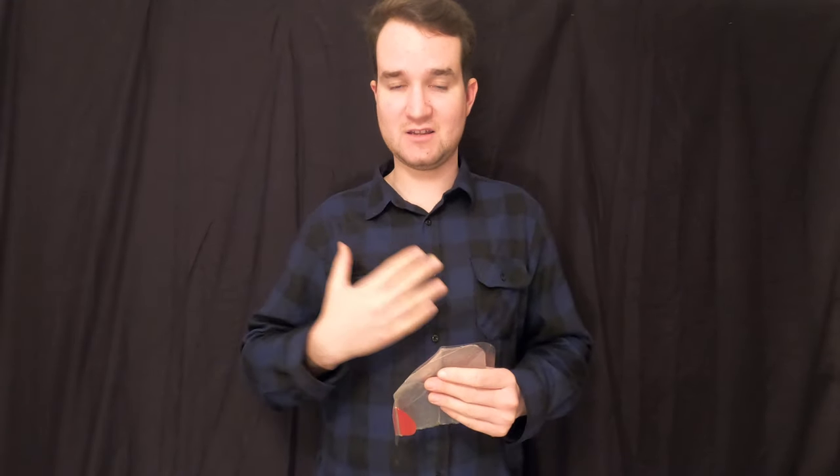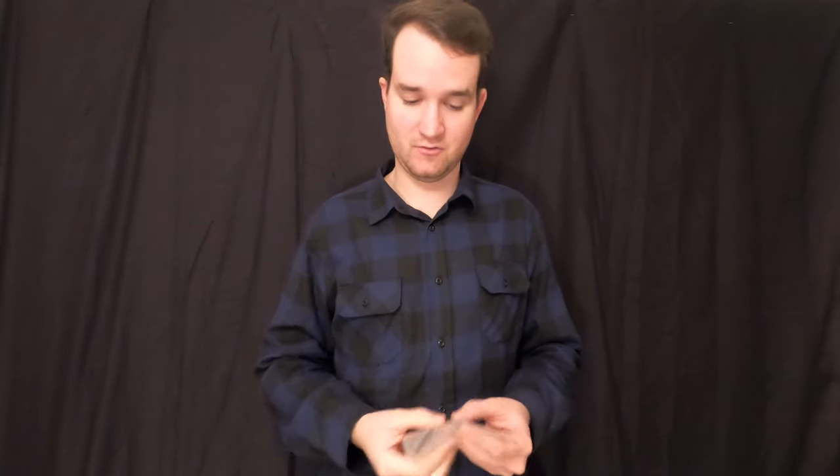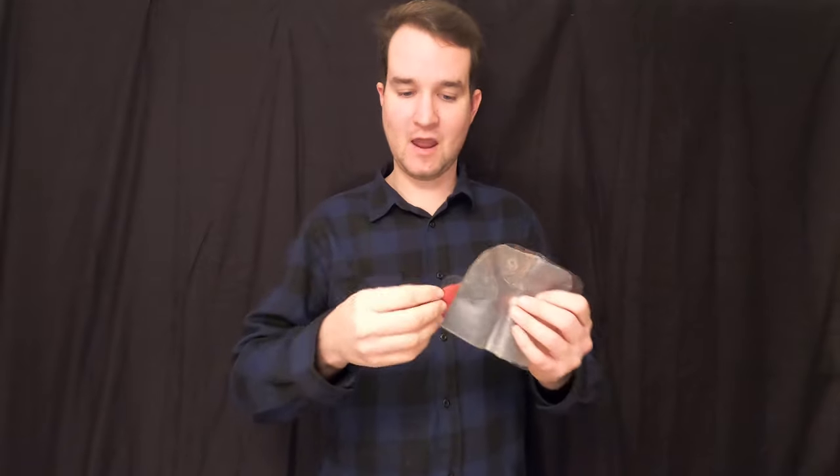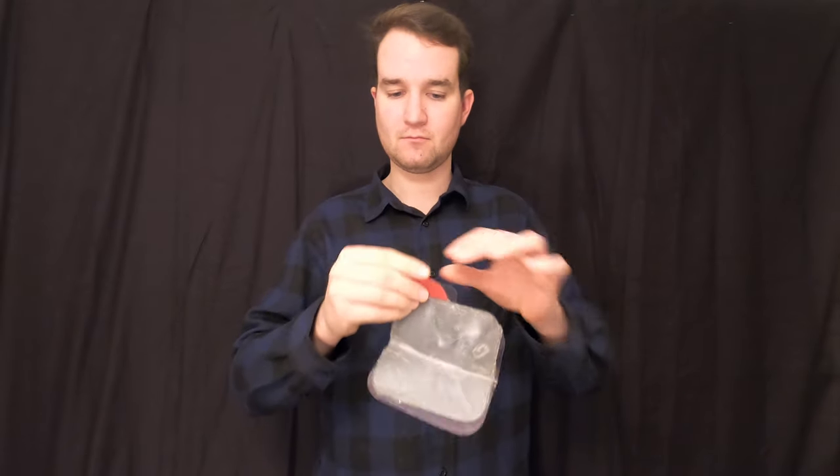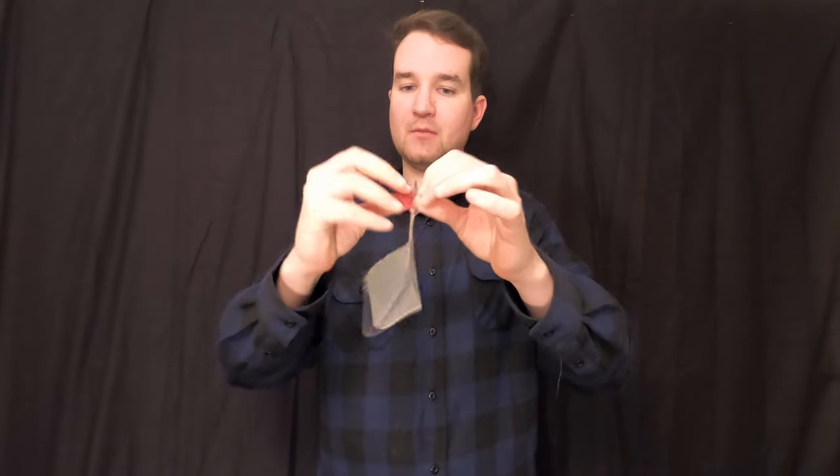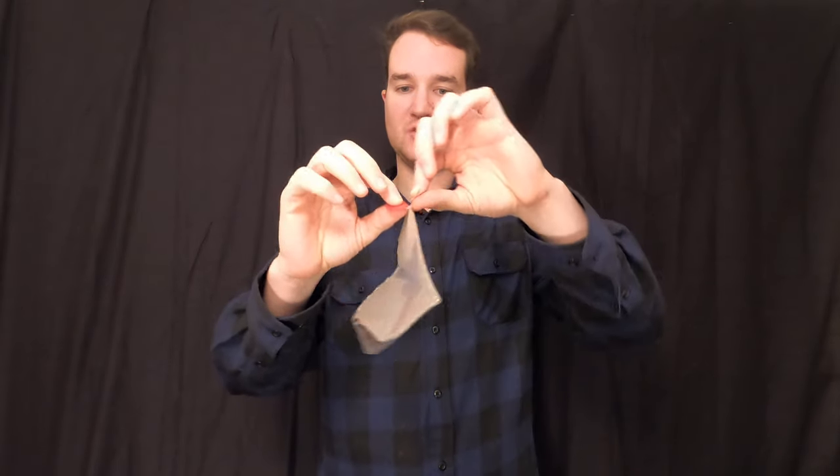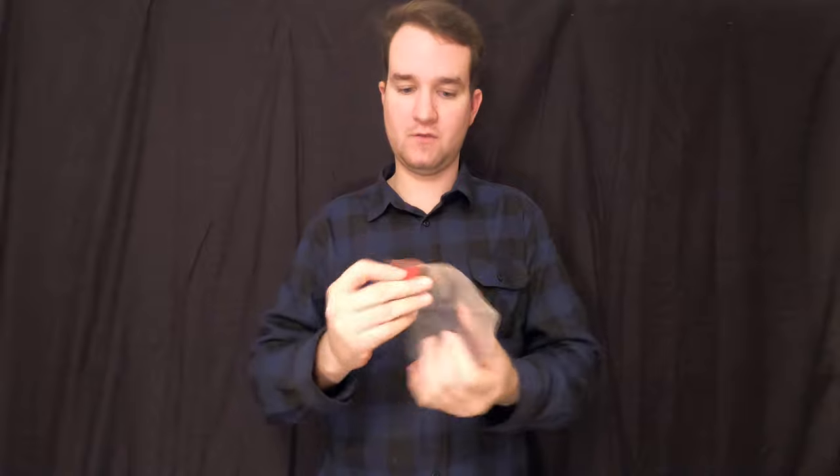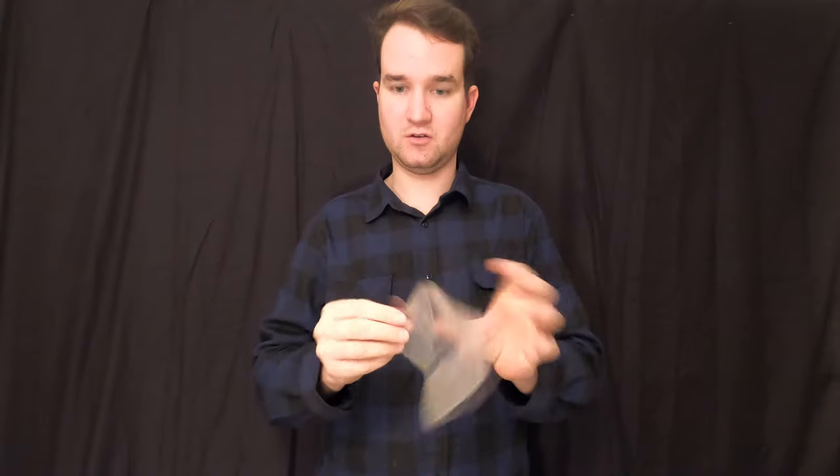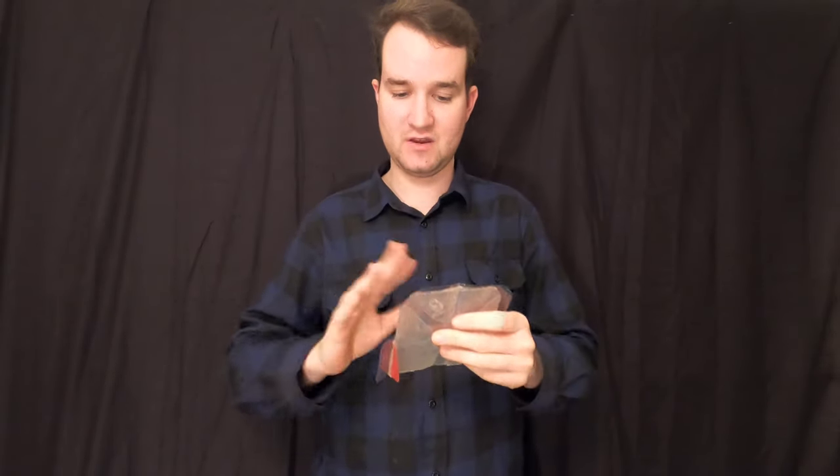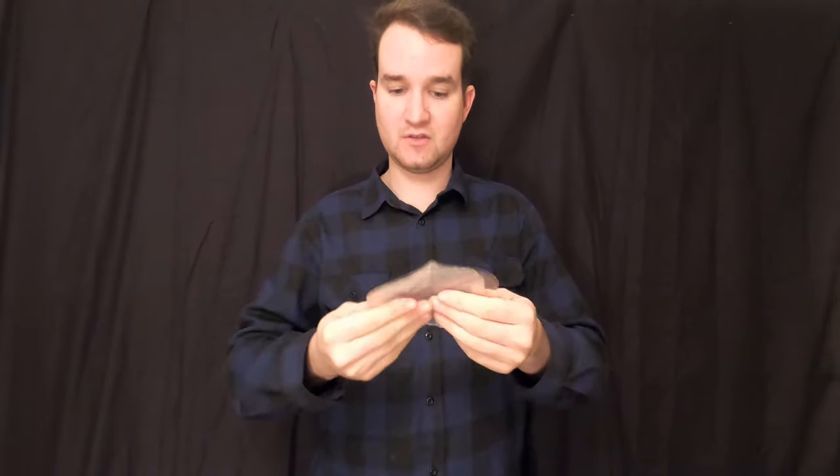A big thing with that is you're wanting to really wipe away, clean the area so that when you're putting the chest seal on, that adhesive can actually stick to your body. It's not just put on the dirt or the fluid and then slight movement or whatever shifting and it just comes off. So we would grab the red tab here and actually peel the liner off of the chest seal and you'd have the liner gone and the chest seal there ready with the adhesive so then you could put it on.